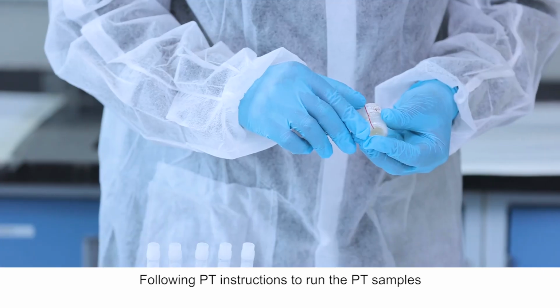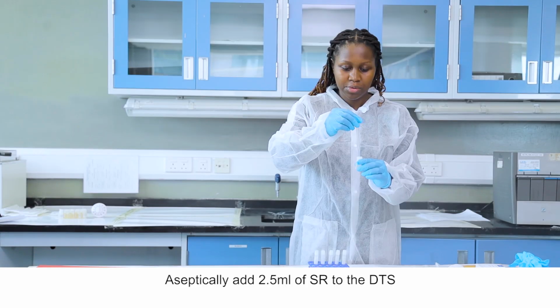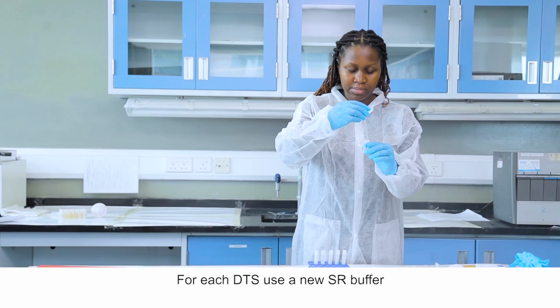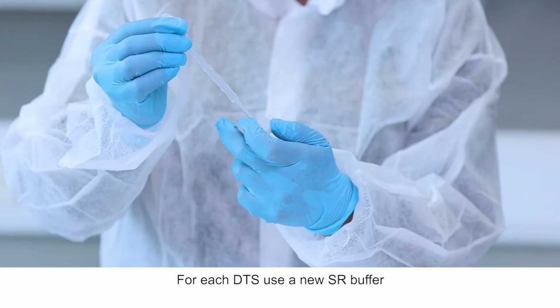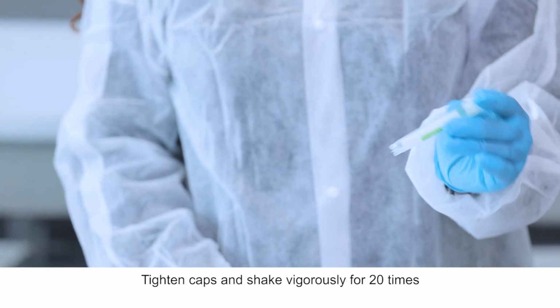Follow PT instructions to run the PT samples. Aseptically add 2.5 ml of SR to the DTS. For each DTS use a new SR buffer. Tighten caps and shake vigorously 20 times.